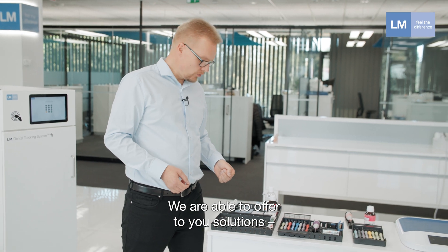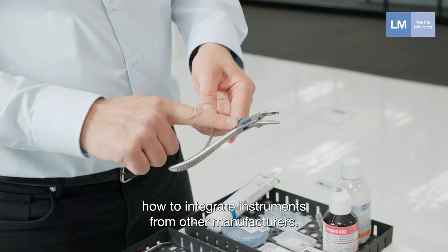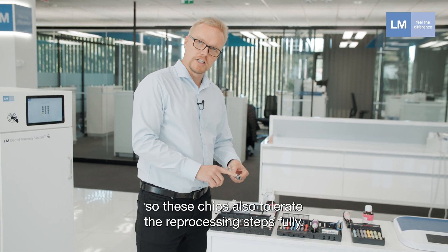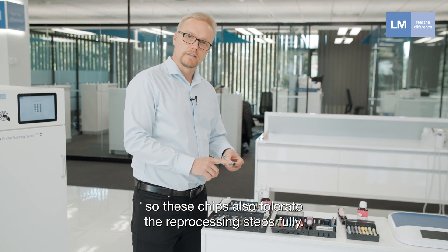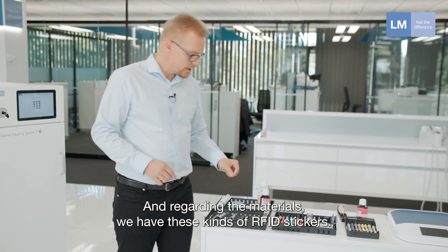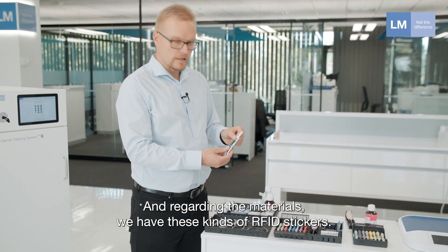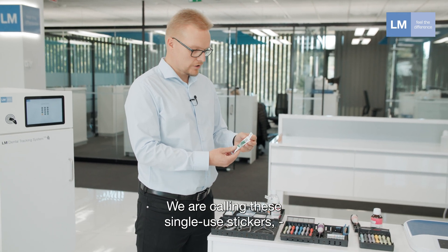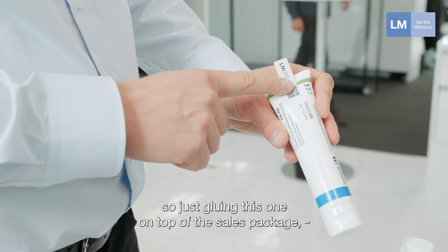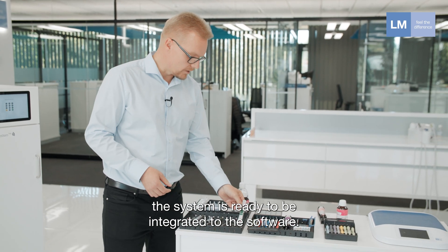We are also able to offer solutions for integrating instruments from other manufacturers — they can be forceps or hand instruments. These chips fully tolerate the reprocessing steps. Regarding materials, we have RFID stickers, which we call single-use stickers. Simply gluing one on top of the sales package makes it ready to be integrated into the software.